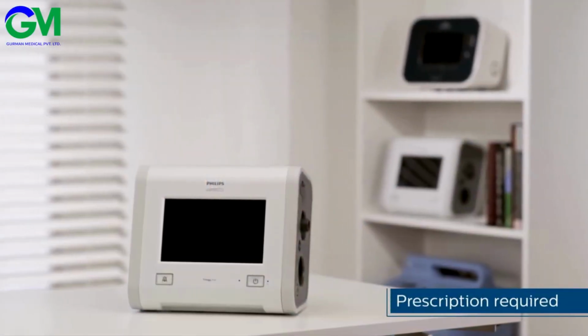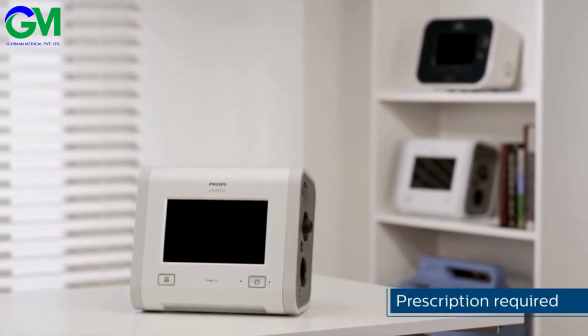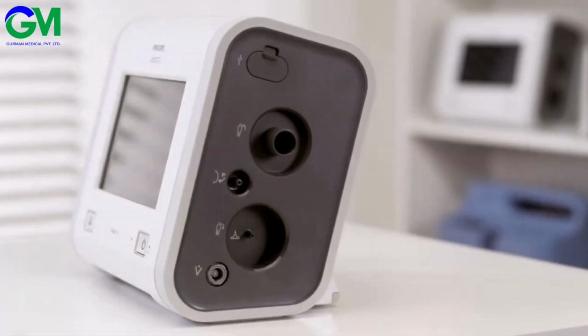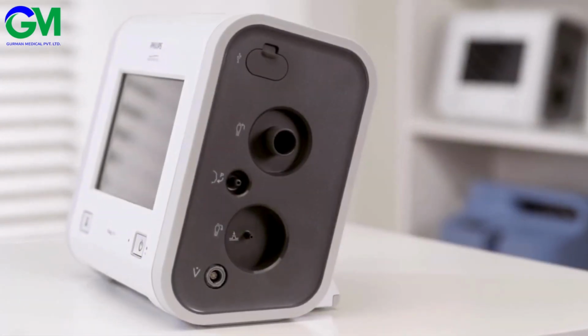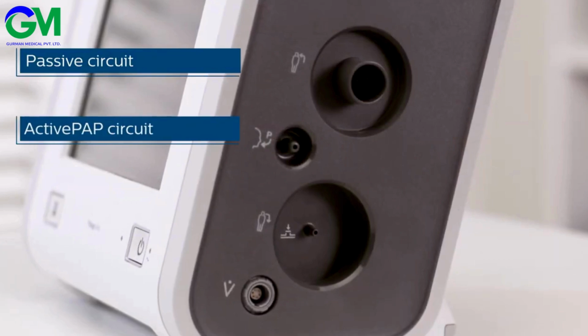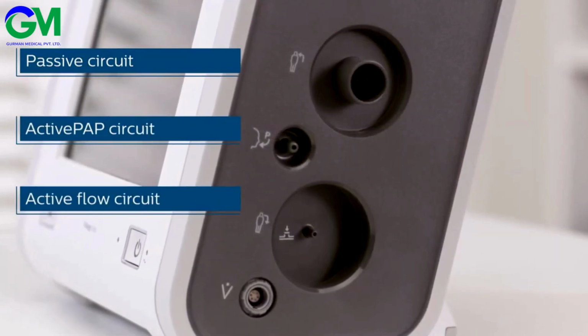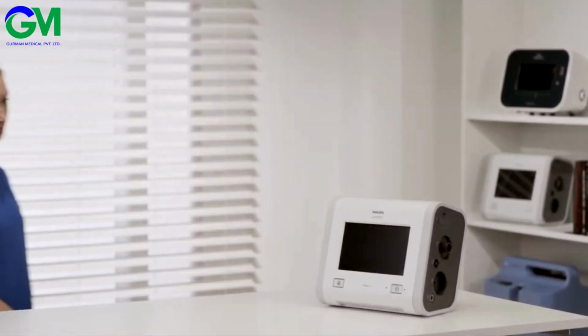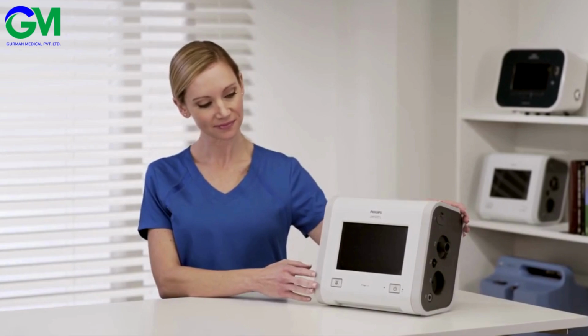Trilogy Evo ventilators deliver enhanced performance in both non-invasive and invasive ventilation. There are 4 types of circuits that are available: passive, active PAP, active flow, and dual limb with corresponding icons. We're going to review the setup of each one.